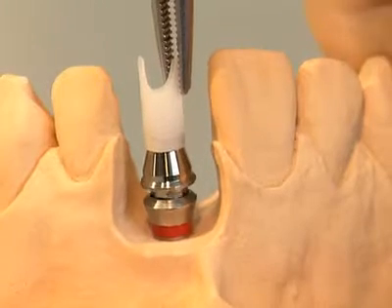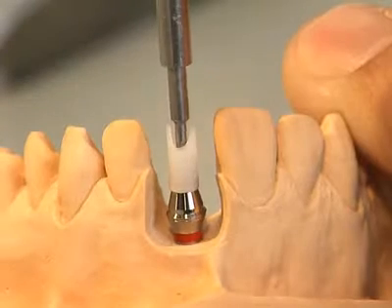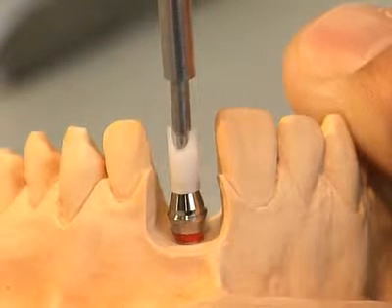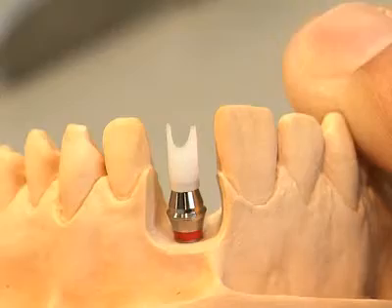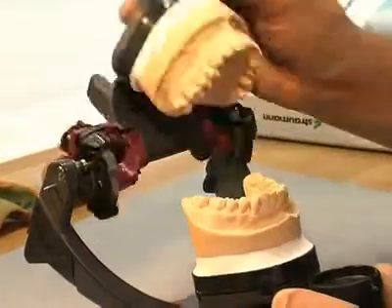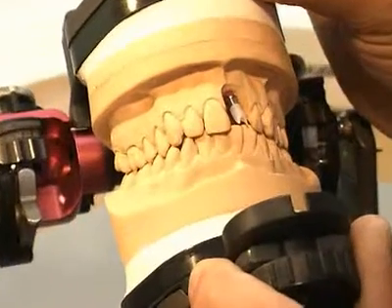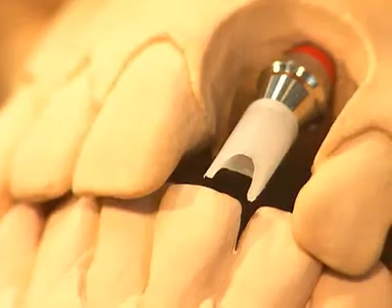It's important that the abutment is correctly positioned in the internal octagon before the internal screw is tightened. Depending on the individual circumstances, the modelling aid can be shortened to the previously marked height of the occlusal plane.